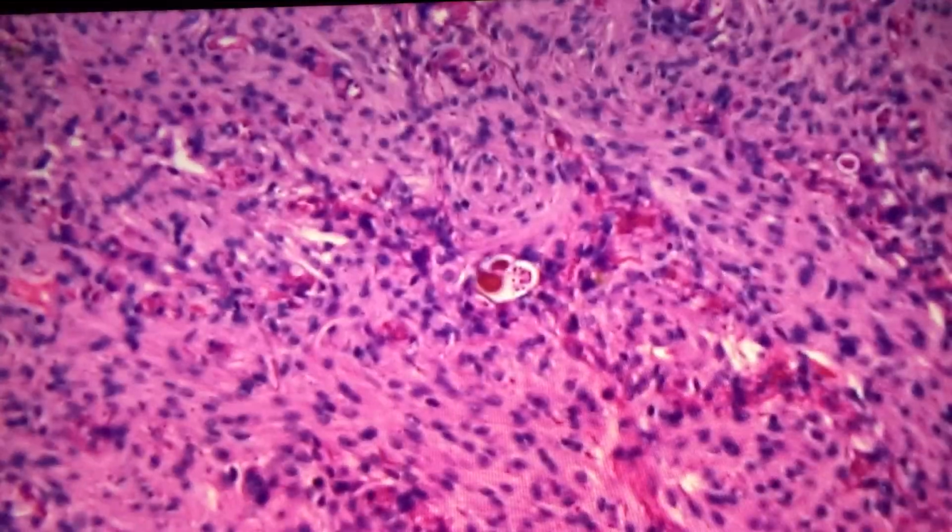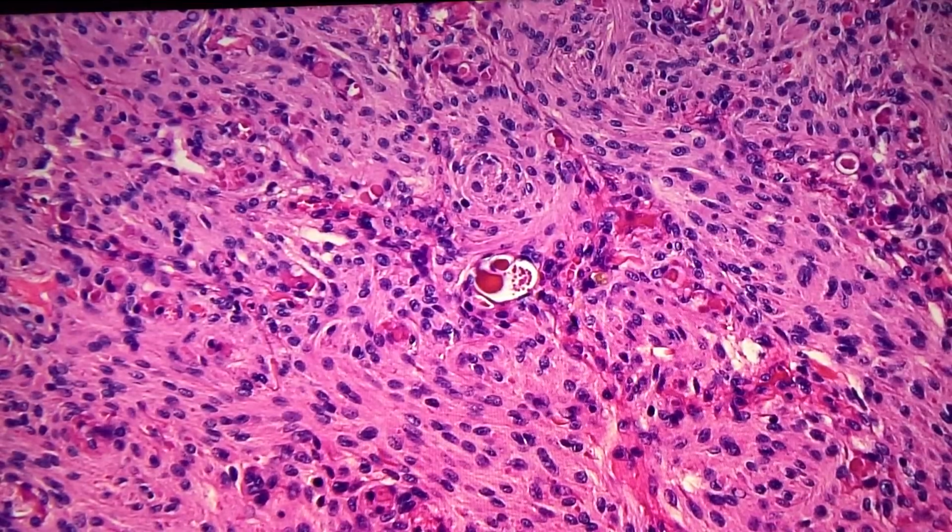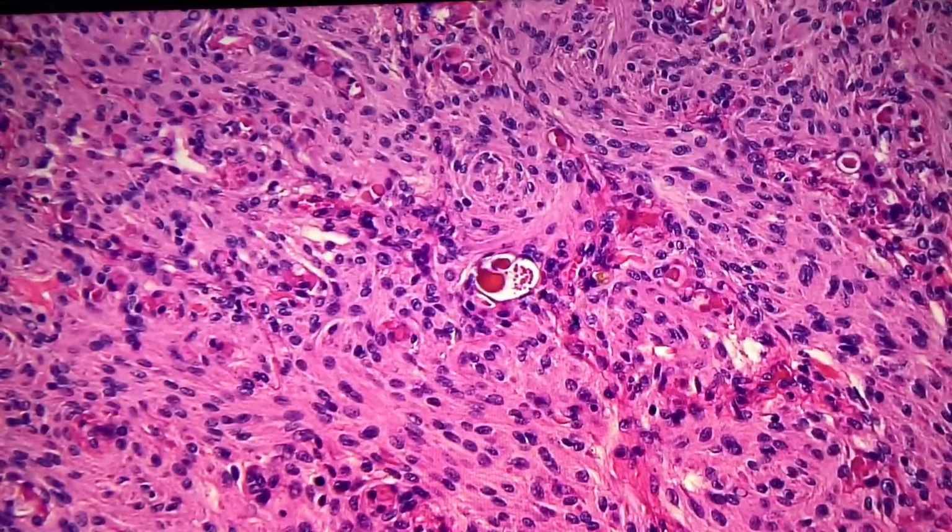And I think this is meningioma. Okay, very good. I think it's some type of meningioma. It's secreting type. I don't know what type. What year are you at, Atsuko? Second year. Okay. We'll promote you to third year on the basis of that. That's very good, right? Is she right? She is absolutely correct. Yes. This is the secretory meningioma.